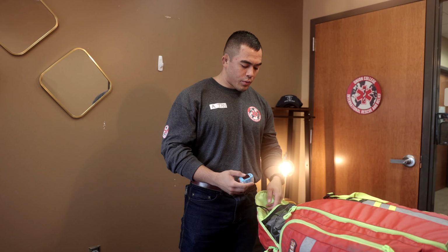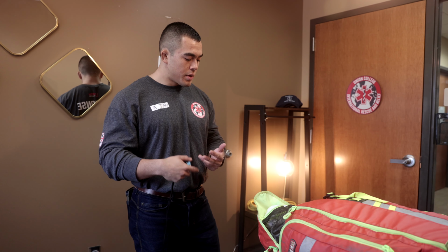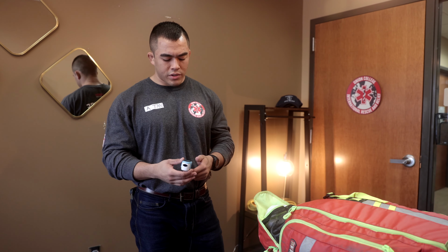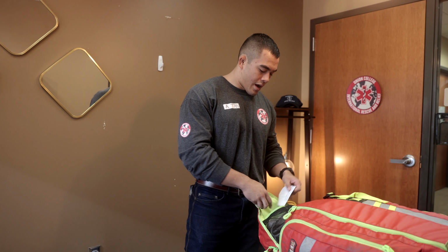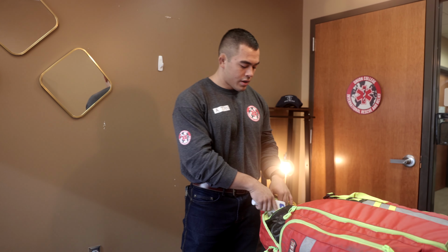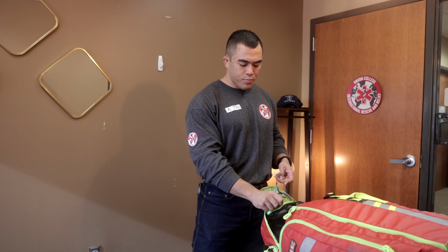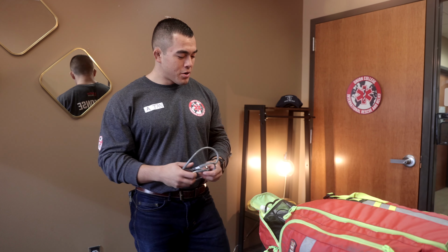With that, we had everything that we needed for vital signs, being heart rate, SpO2, temperature, BP, respiratory rate. All that was done through this top pouch here. So we have our pulse ox. We have our temperature gun. This is just the infrared non-contact thermometer. We would have our stethoscopes. A lot of us brought our own. This one happens to have 2 in the bag, but so, stethoscopes.